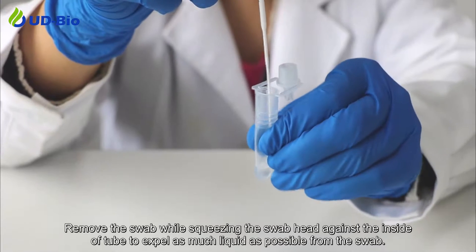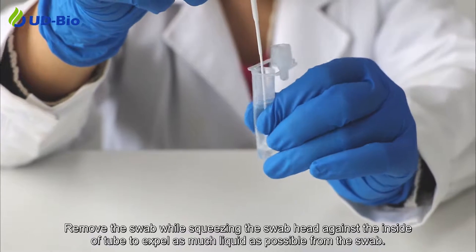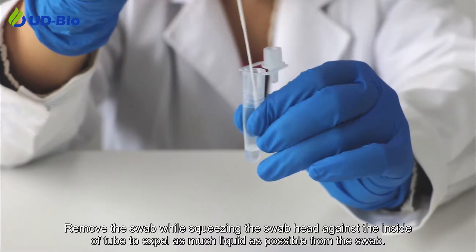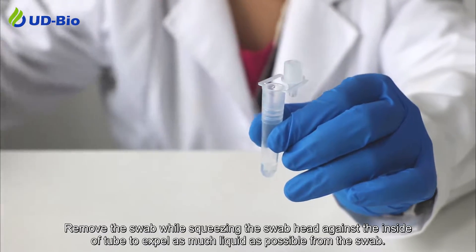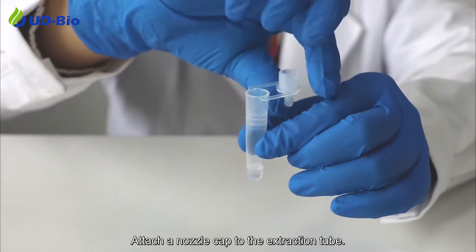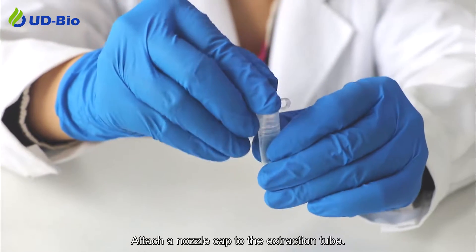Remove the swab while squeezing the swab head against the inside of the tube to expel as much liquid as possible from the swab. Attach a nozzle cap to the extraction tube.